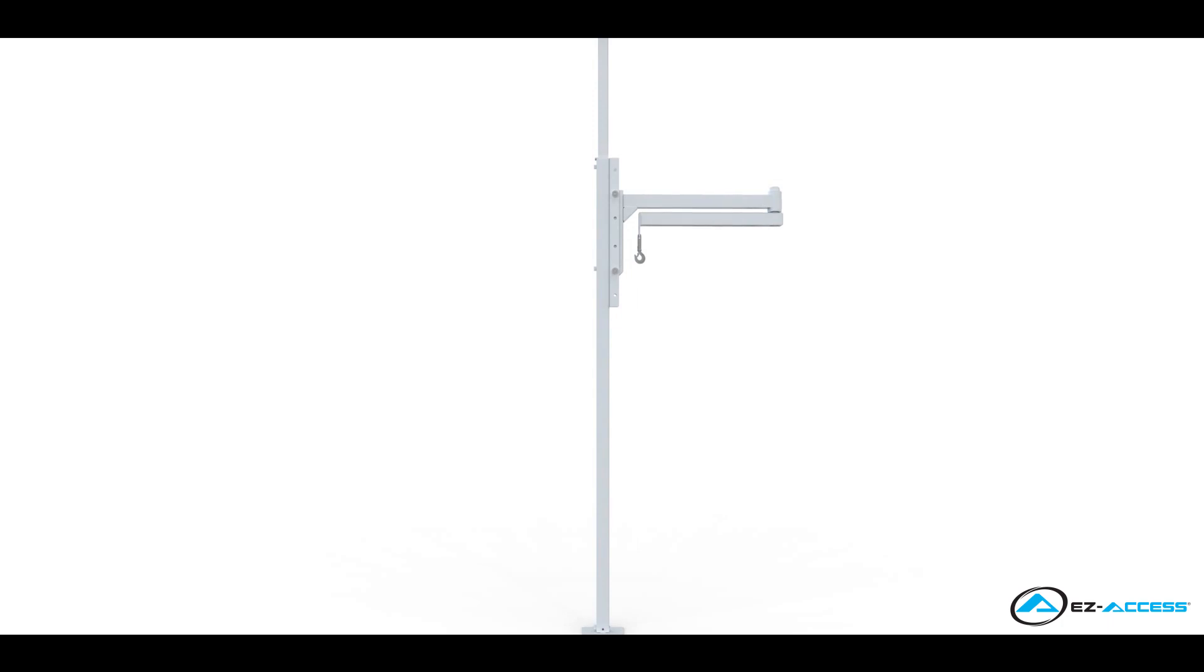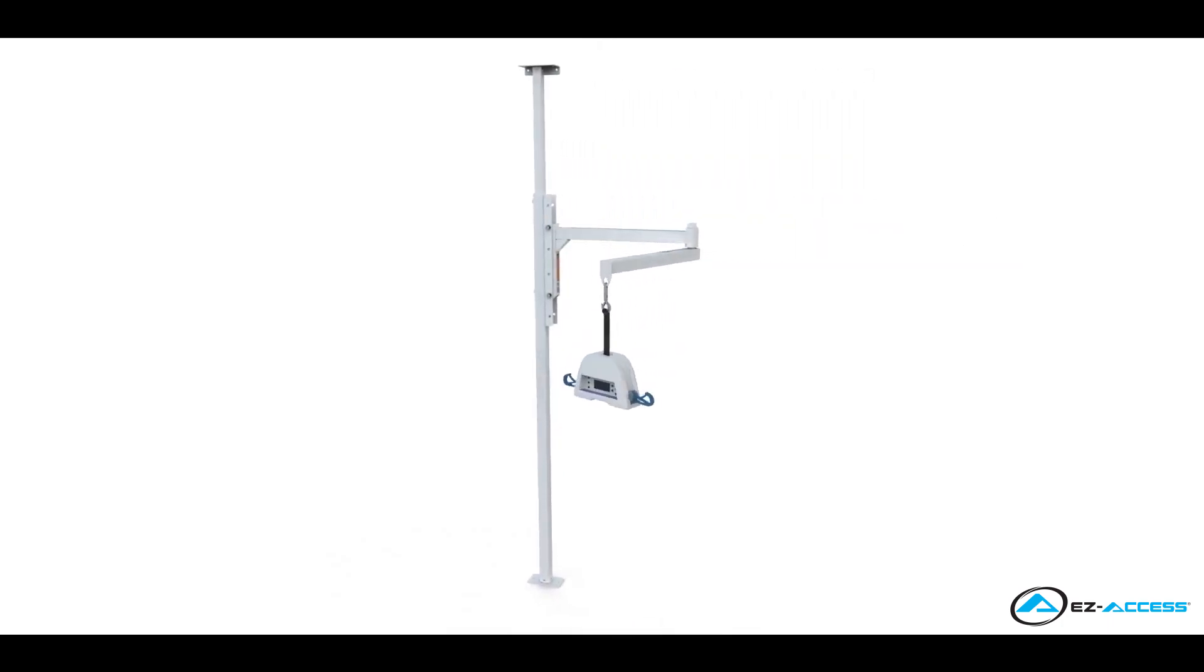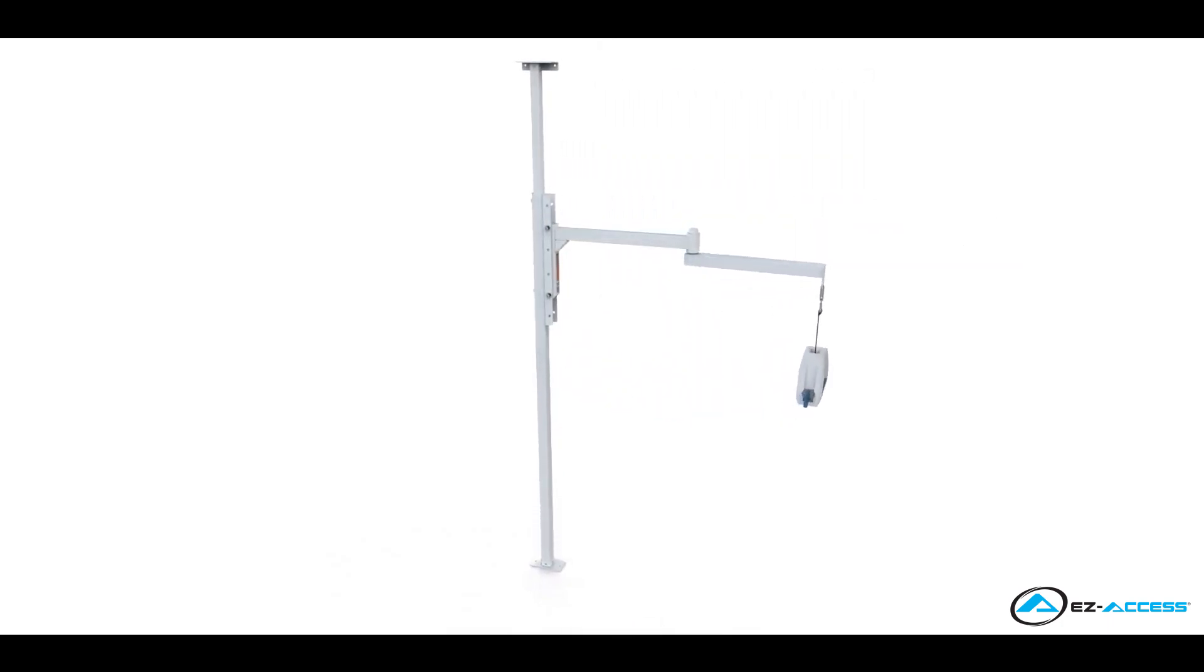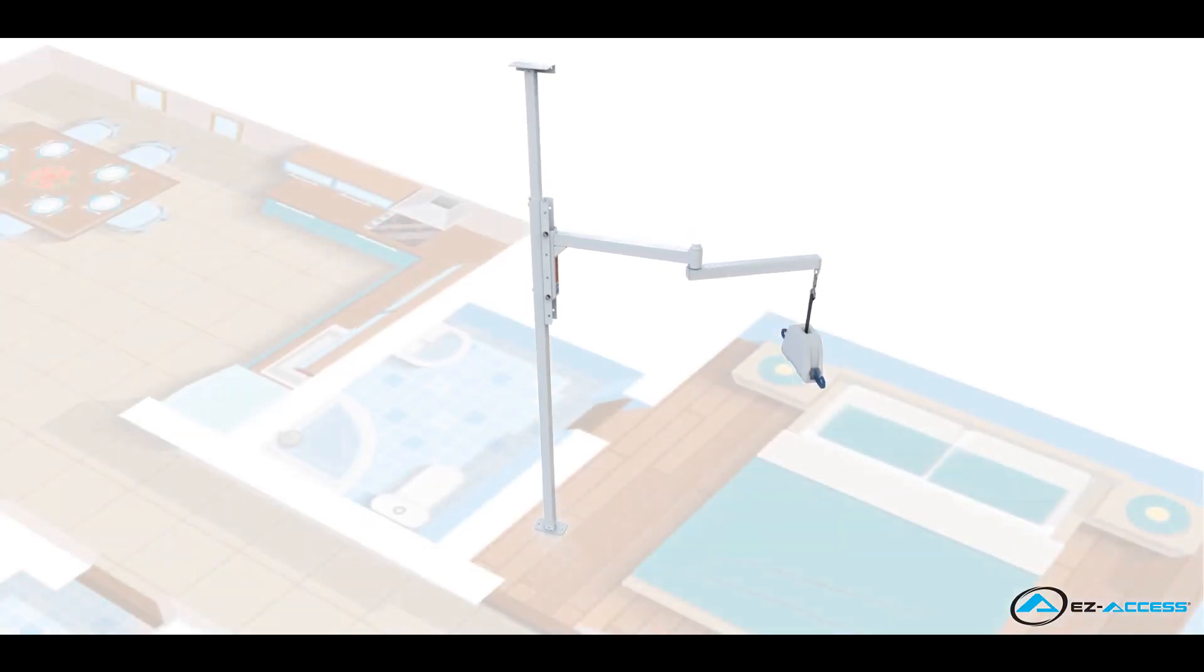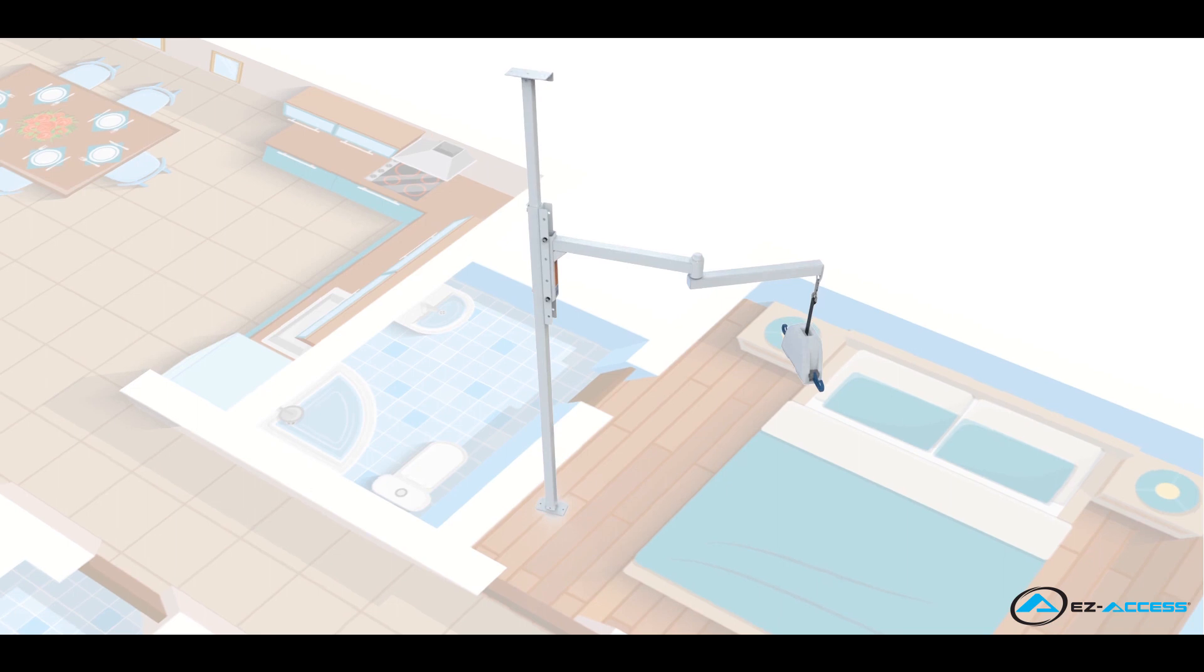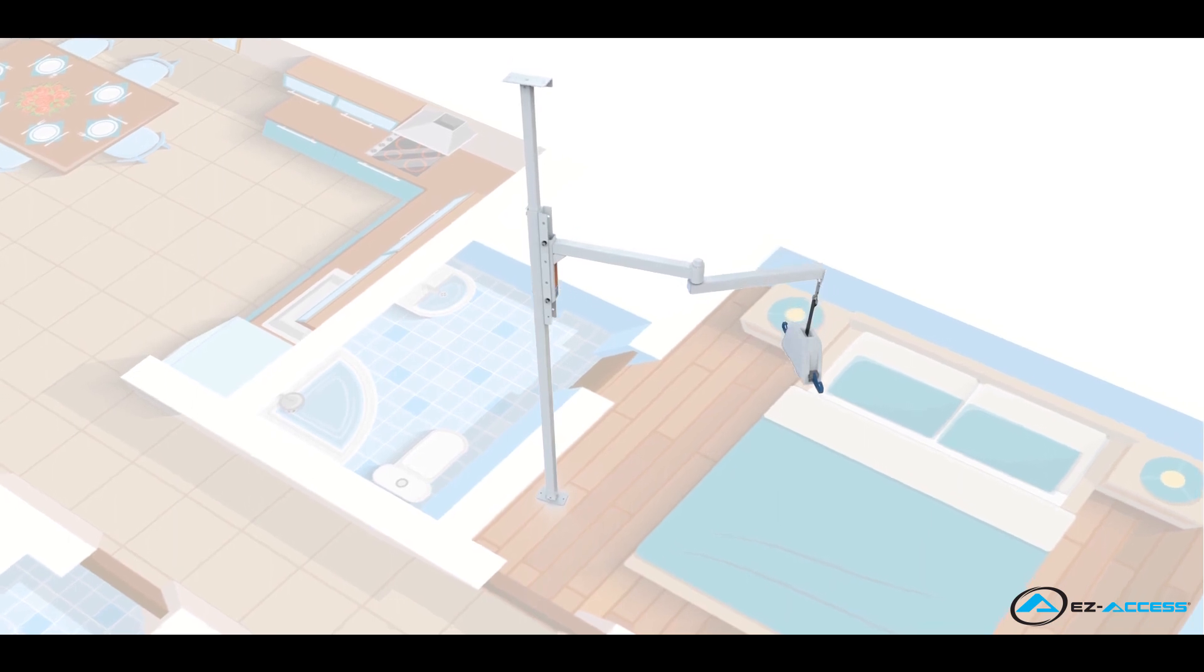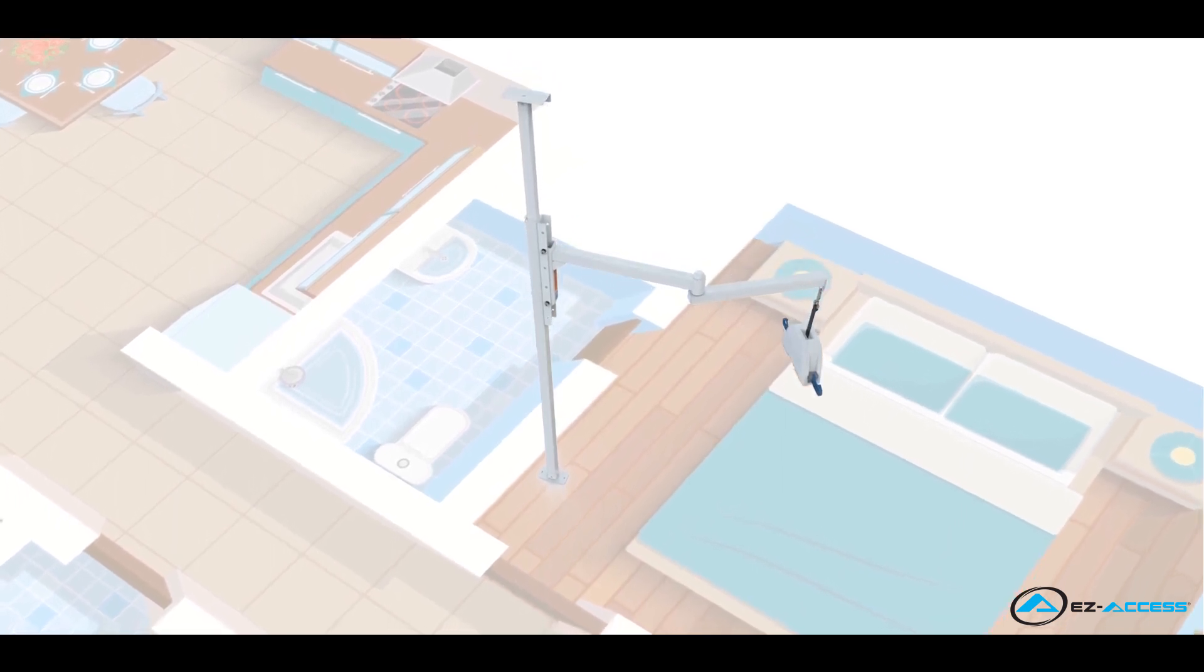Designed to be used with your own motor and sling, the Orbit's non-obtrusive design allows the unit to be placed in small bedrooms and bathrooms and can be used with most sizes of beds, allowing you to sleep in your own.